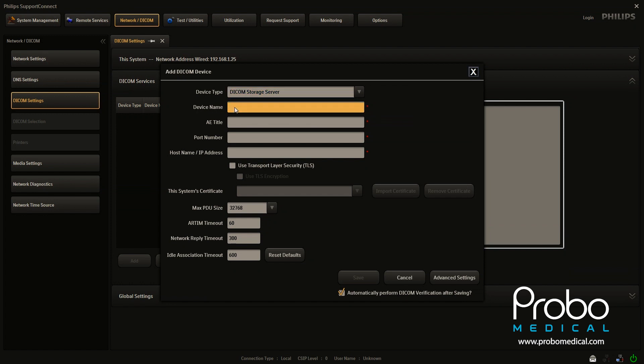I'm going to go ahead and enter the system information now. And we will pop back right as soon as that is complete. So let's just run through these real quick.